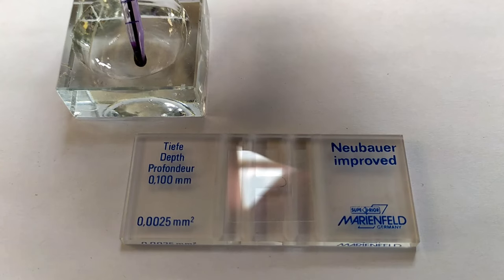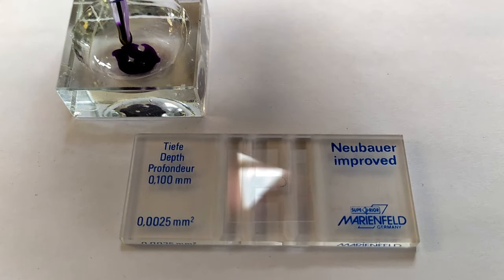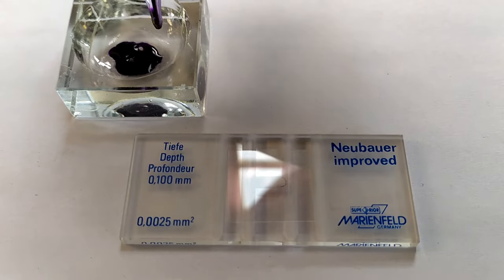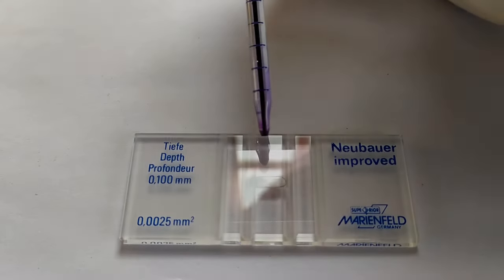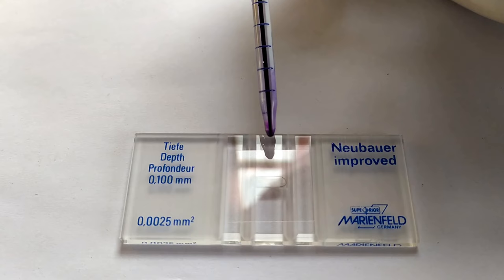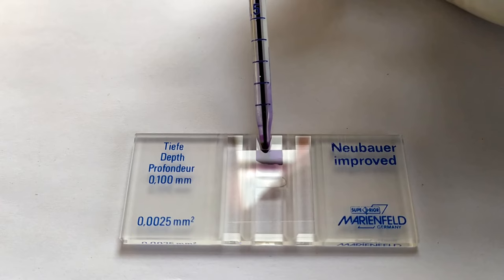Discard the first few drops from the WBC pipette. Carefully position the tip of the pipette on one edge of the cover glass. Allow the contents of the pipette to gradually flow into the narrow space between the cover glass and the counting chamber via capillary force like you see here.